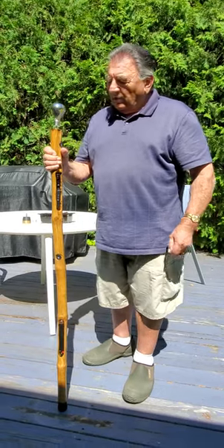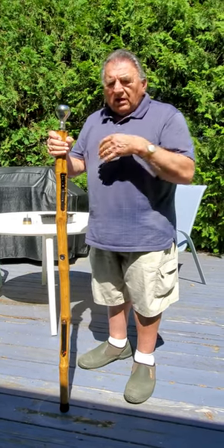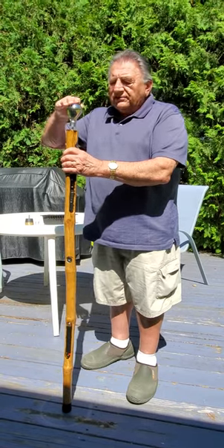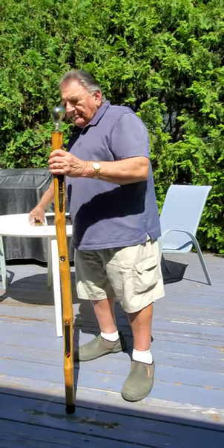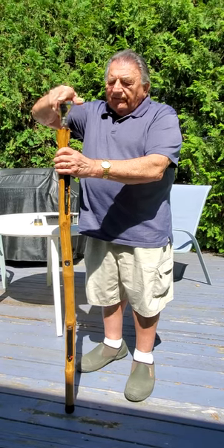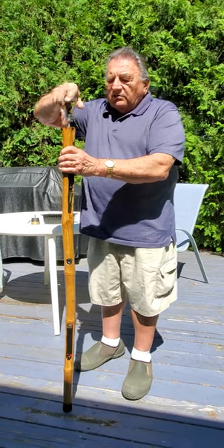Here we are in video number four. I'm taking this back up now. We're assuming that he needs a crutch and that's why we've interchanged this knob in place of this one. So we take that off. This is assuming he's away from his home now and he needs a crutch.